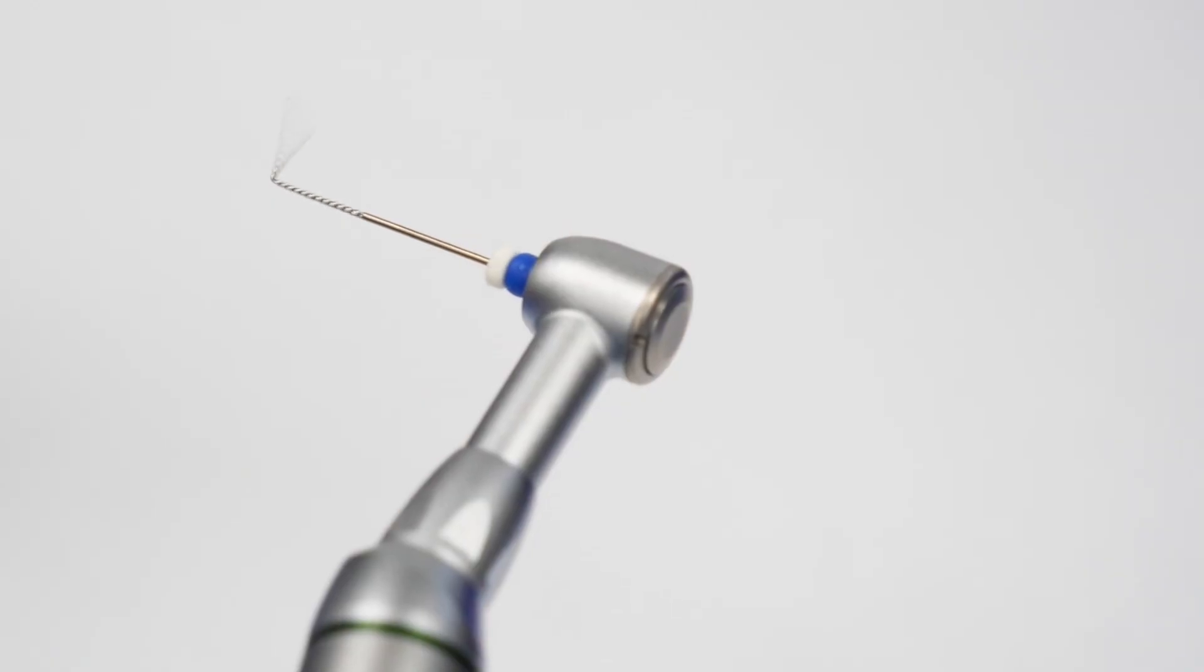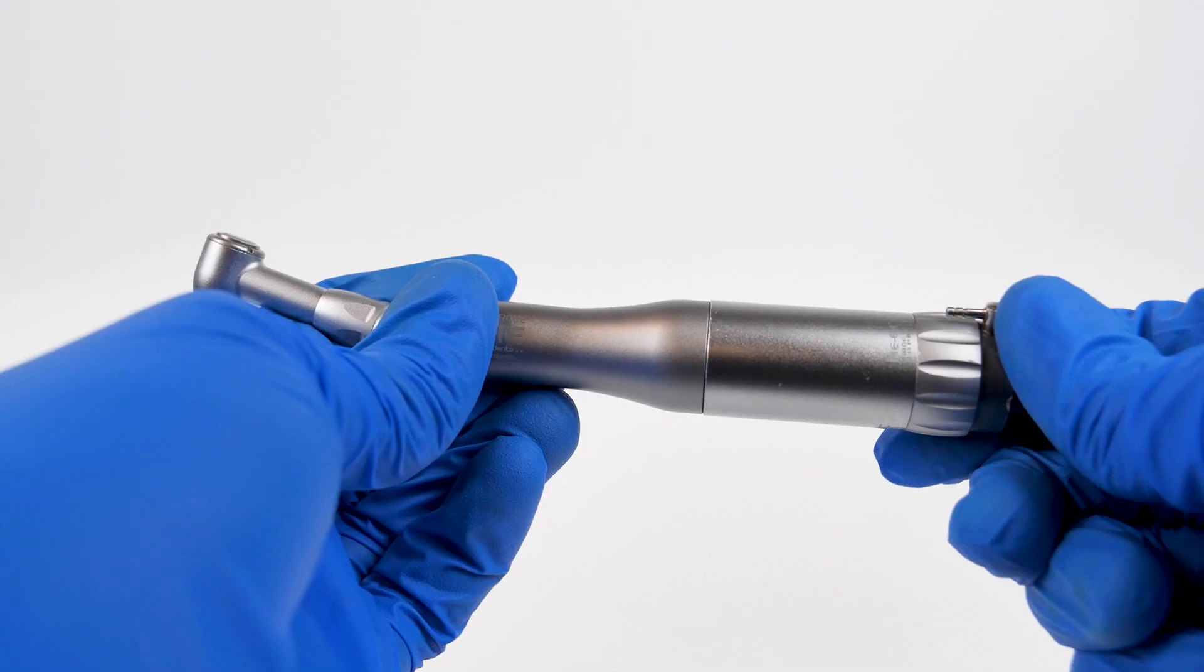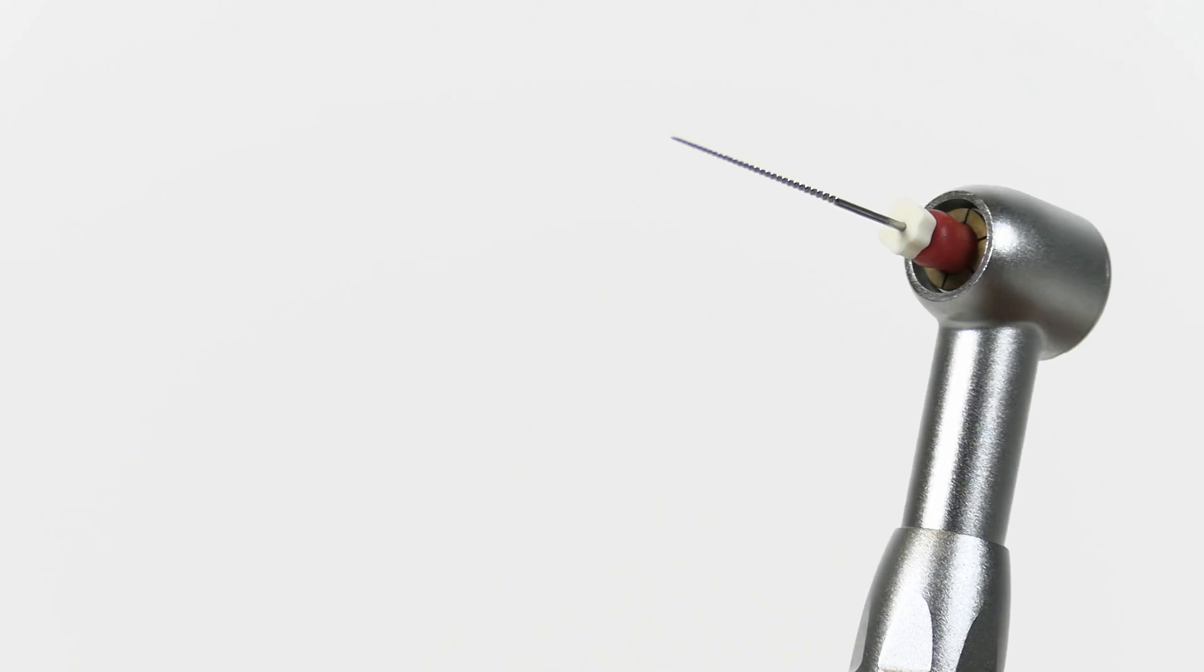The oscillating movement of this handpiece allows you to smoothly and efficiently negotiate through the canal while reducing fatigue. You will enjoy the ease of use with the K-Endo for all root canal preparation.